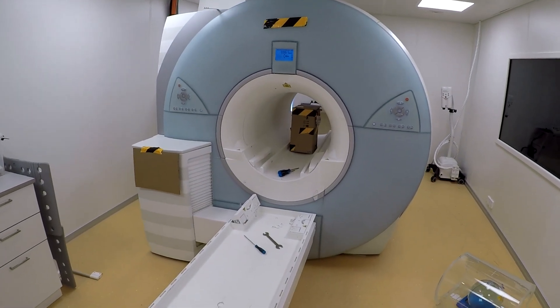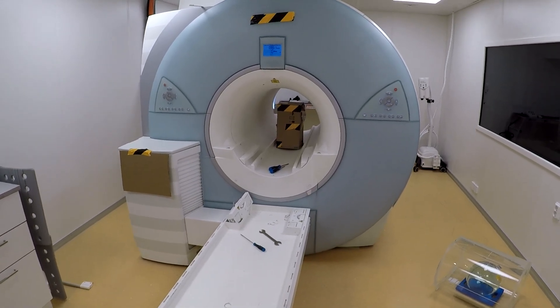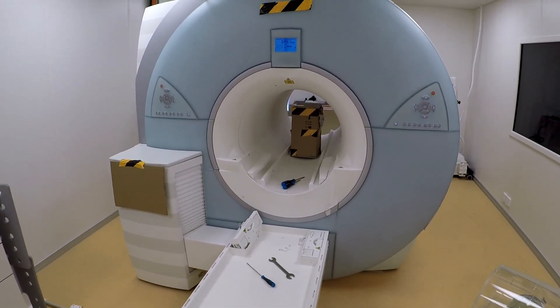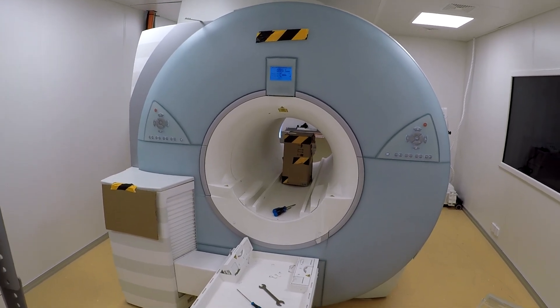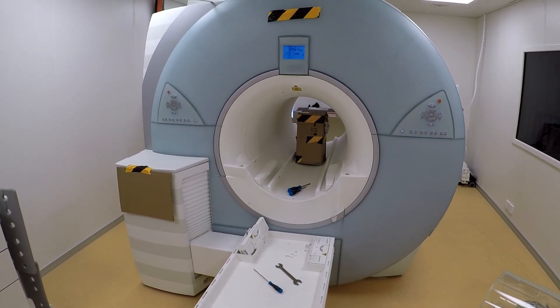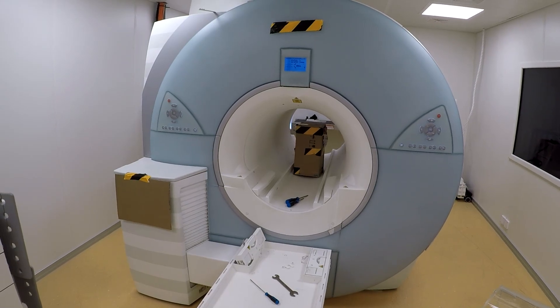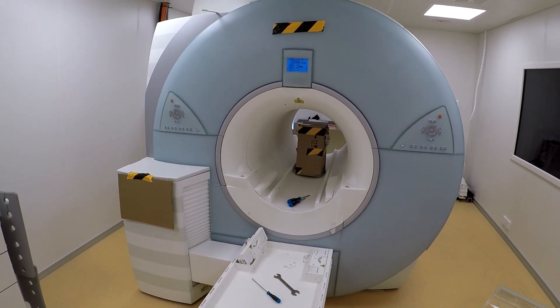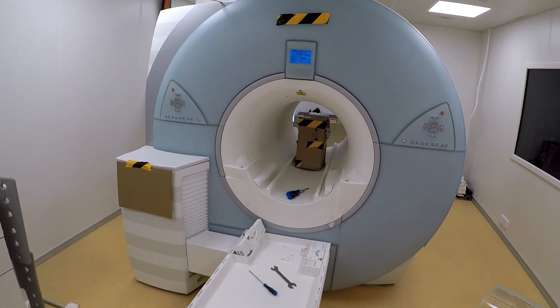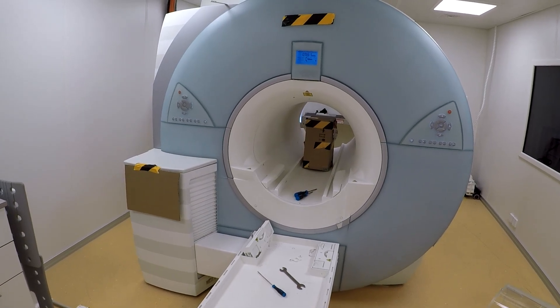This is one of my favorite demonstrations on the dangers of working on an MRI or around it. This is a 1.5 Tesla superconducting magnet, which means that the windings are immersed in liquid helium. We use an external power supply to feed in current — approximately 500 amps — and then close the special switch and disconnect the supply.